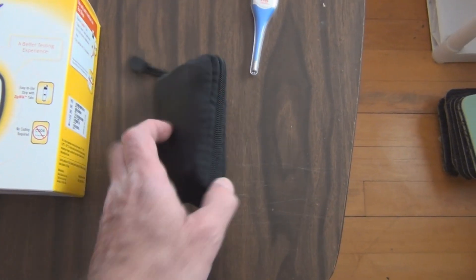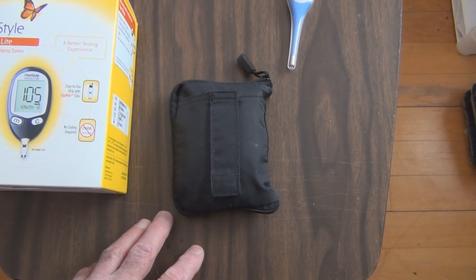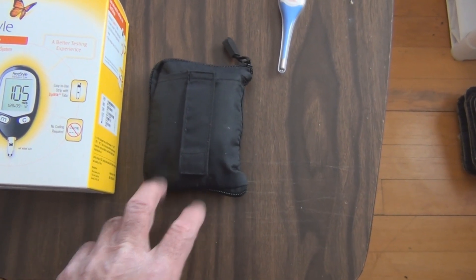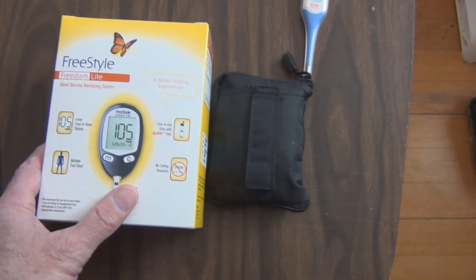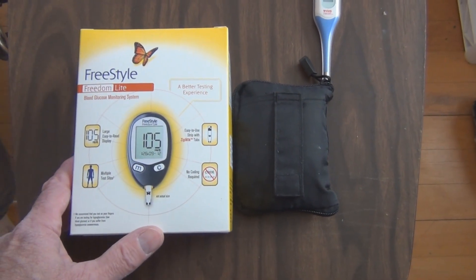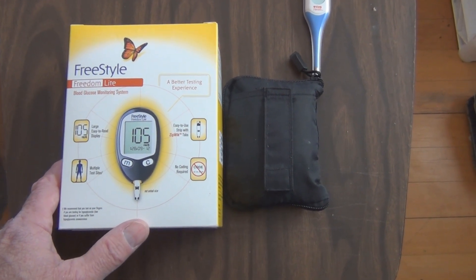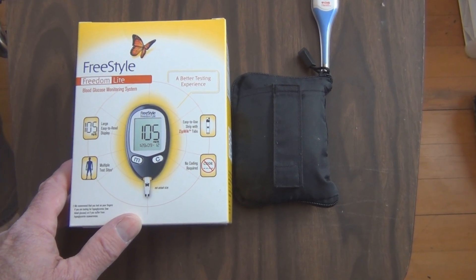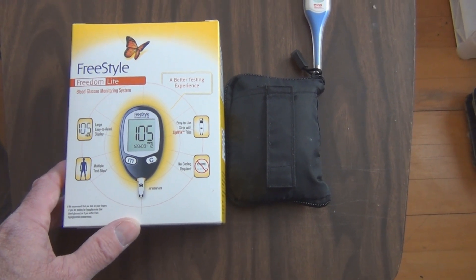My mother's glucose — she's type 2 diabetic. We have a pill and then we just recently started a very low dosage of insulin. We recently had an appointment with a primary care physician and I was a little concerned that in the morning the readings were getting sometimes below 100. I think I had one reading one day, it was like 75.